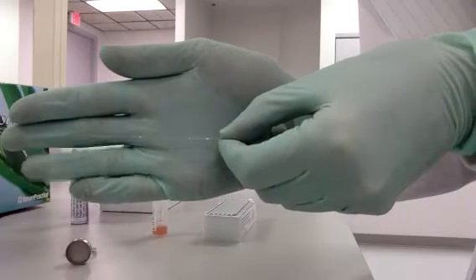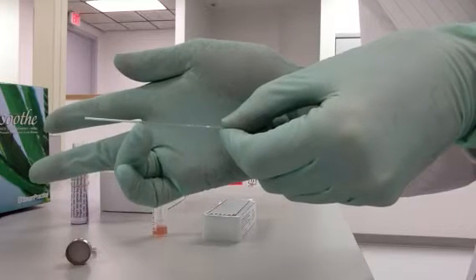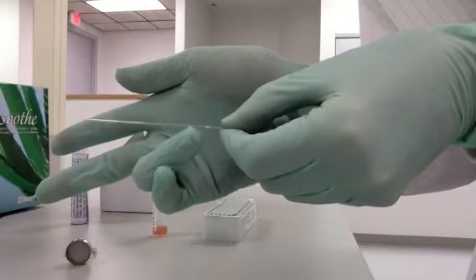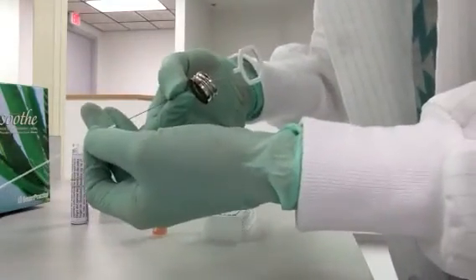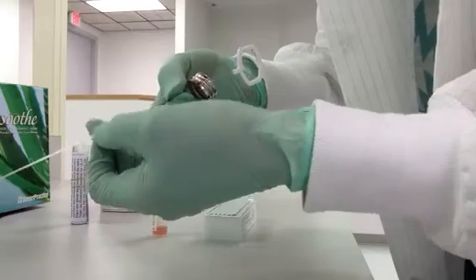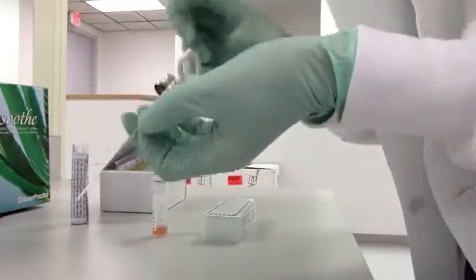For your purposes, you're going to be using whole blood. But if you were doing serum, then that would be the 5 microliter line. And this is the 10 microliter line for the whole blood. So basically what you do is you take this wire piston and put it inside the capillary tube, and put it in all the way.